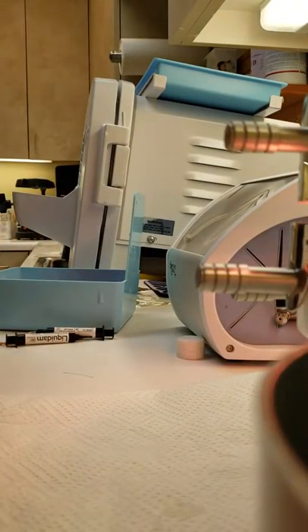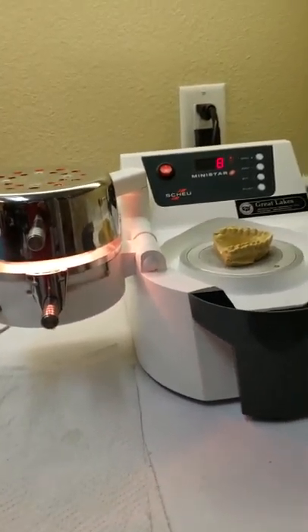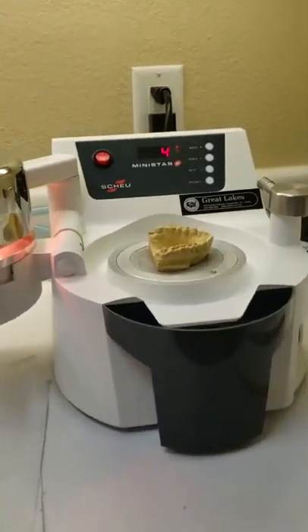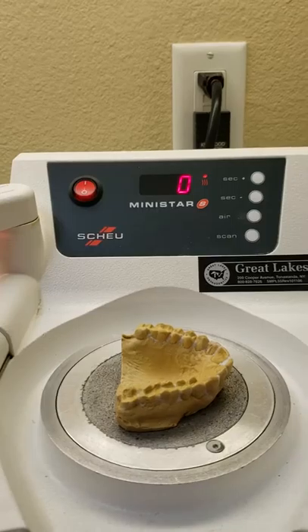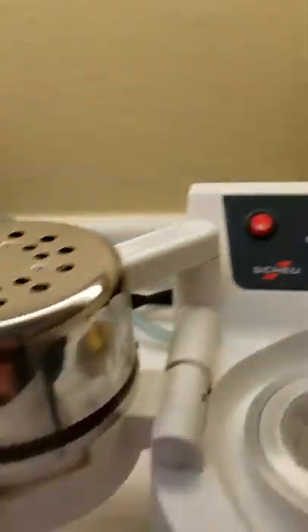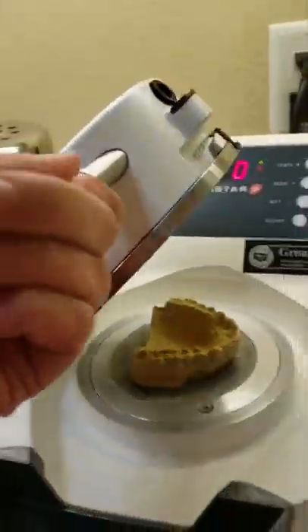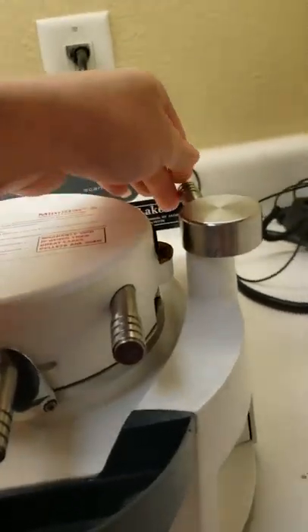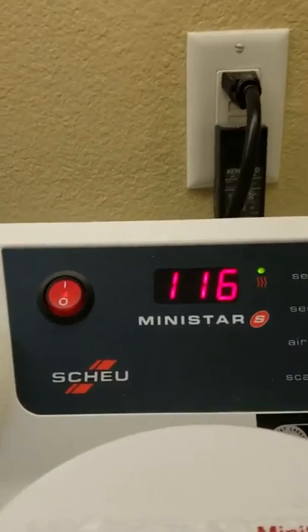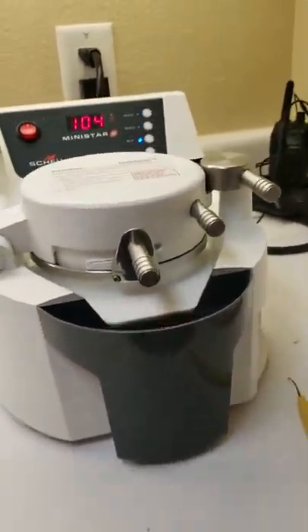Put your little barcode back in the bag so it doesn't get lost. The machine beeps during the last few seconds, then does an additional five-second countdown. Once the light turns green, slide the heater all the way back — it's very hot, so be careful. You can see the material has bowed down; flip it right on top, get the lever and tighten it. It will automatically start applying pressure to suck down the Essex material, and it takes 120 seconds.